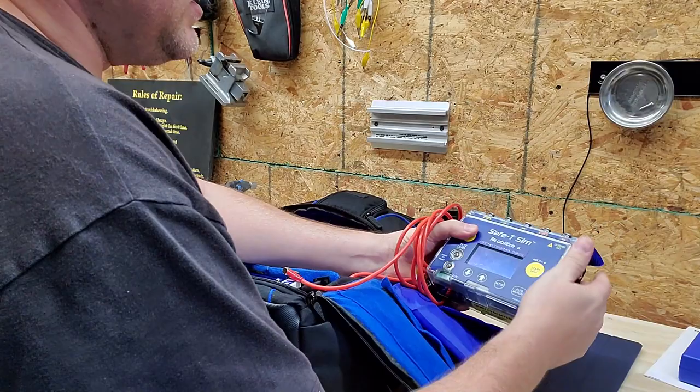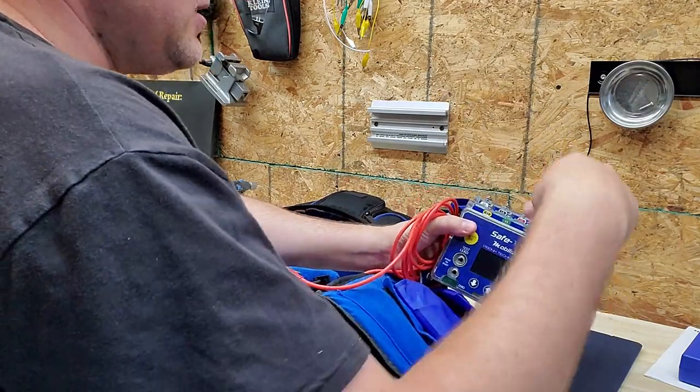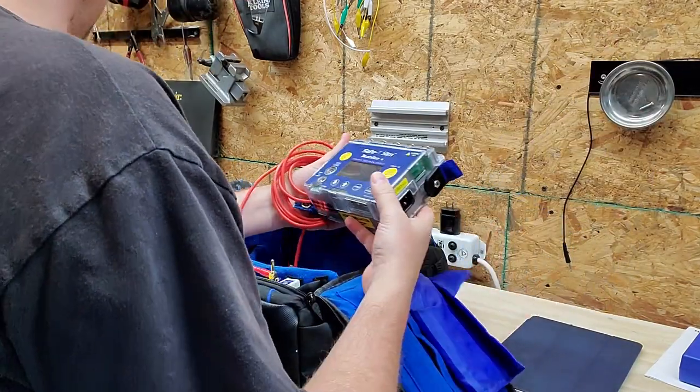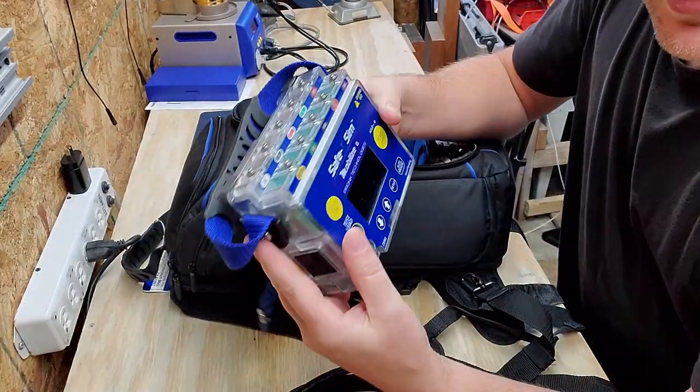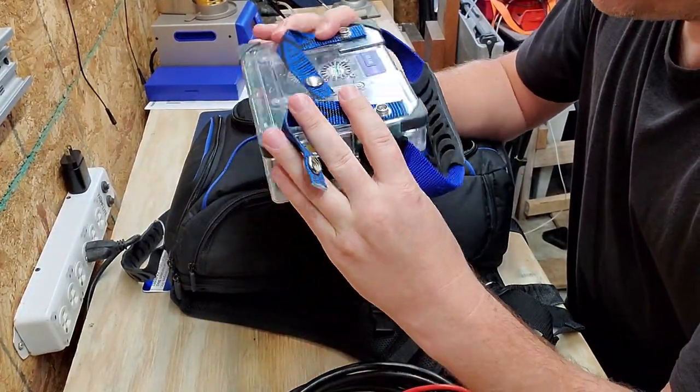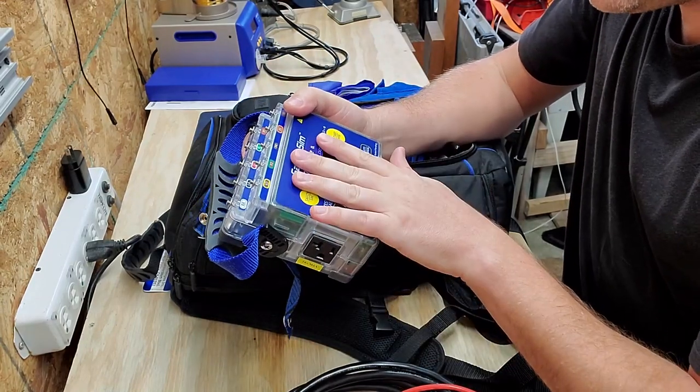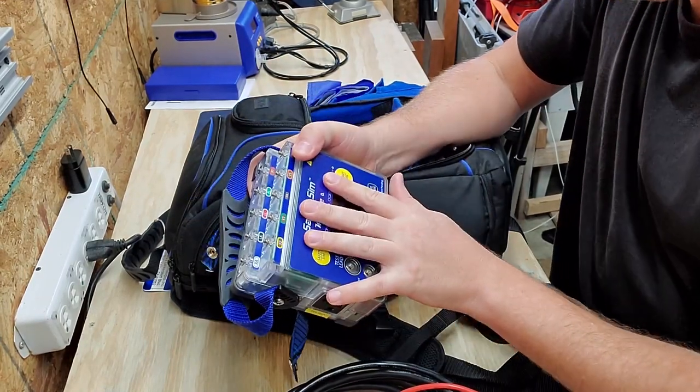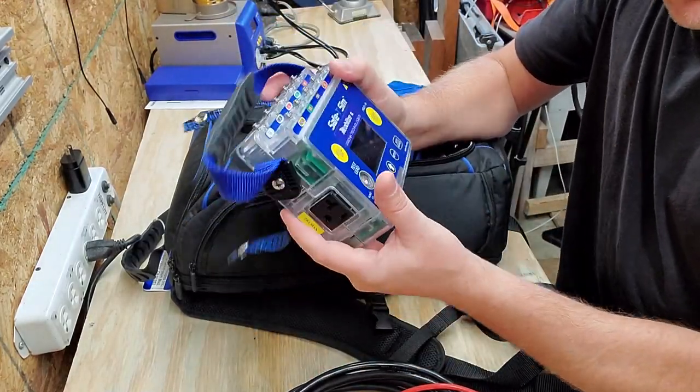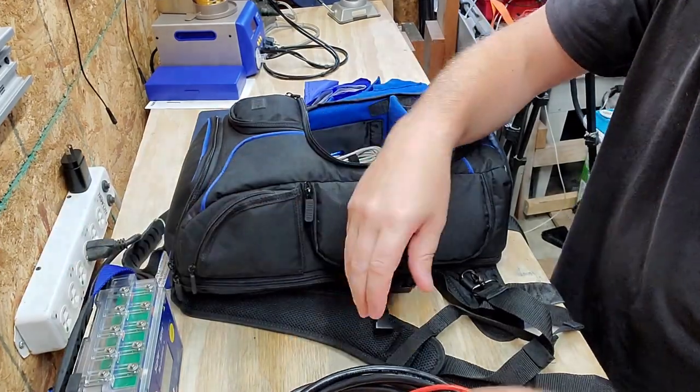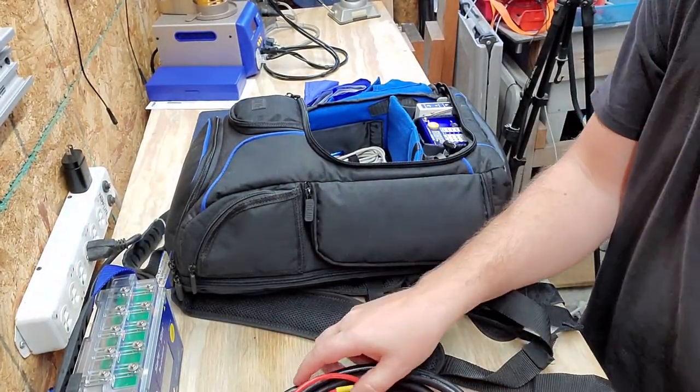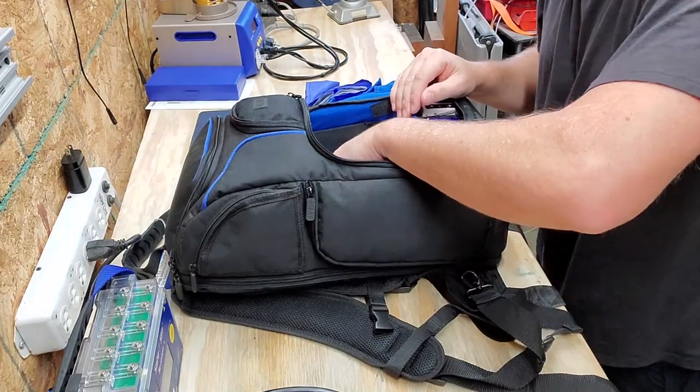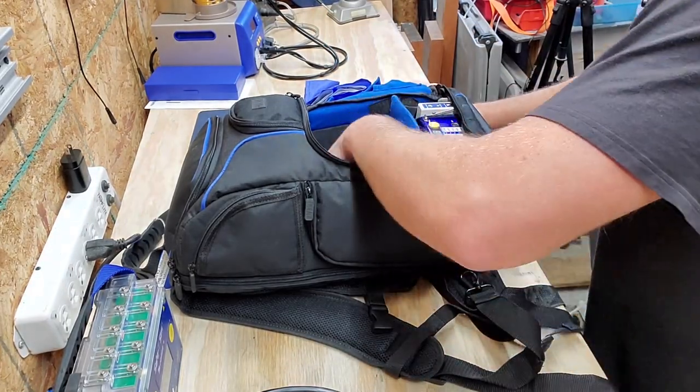Let's open up the main compartment. This is the safety sim - an electrical safety analyzer plus a simulator. It does a lot of different things. The safety sim is a good little piece of kit, and this thing is also the brains behind the automated functionality of the Mobilize app. We are going to use him in just a moment.